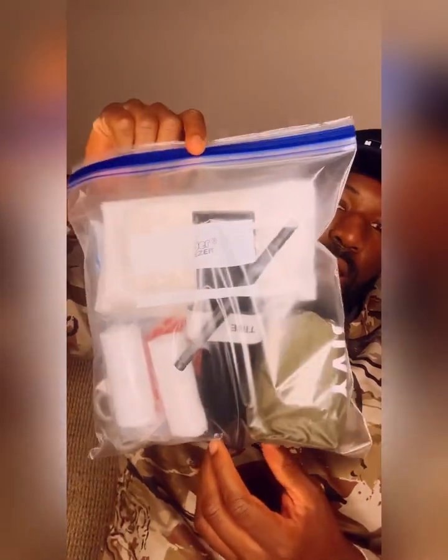All together those four extra items were an extra $5, which brings our total kit to about $39 and some change. We got very close to that $40 mark but did not surpass it, so we did very well with this kit.